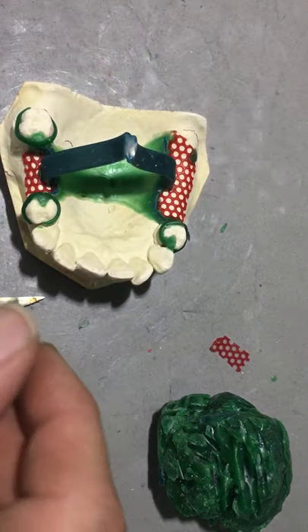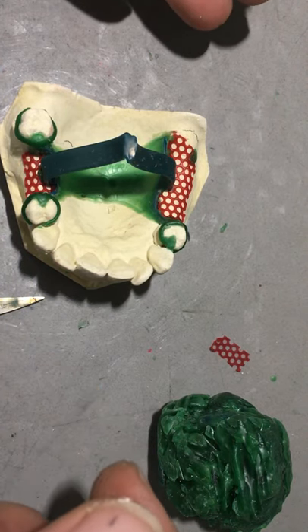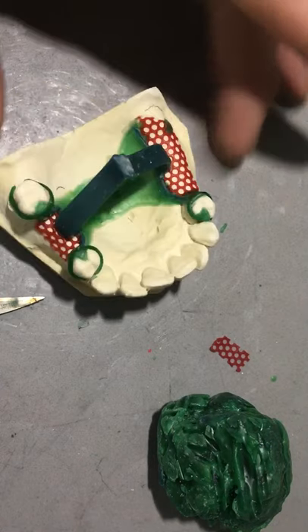I'm also going to turn on the lights and go under magnification so I can clean up my wax up, where I have a few small voids and some extra wax.